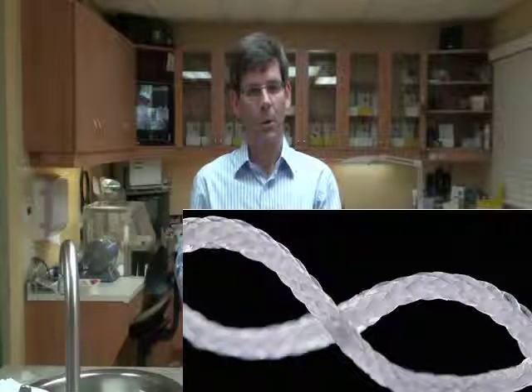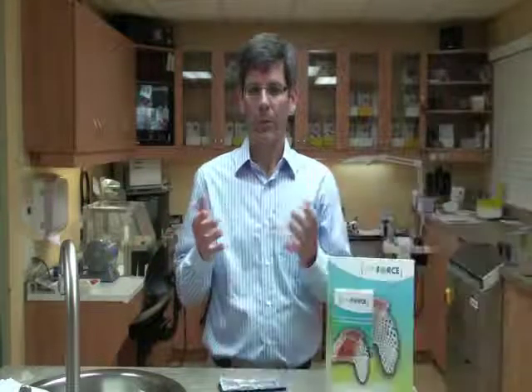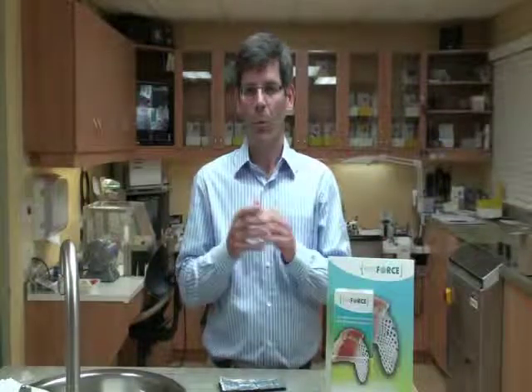There is also a clear version of Fiber Force which comes in 1 and 2mm braid, unidirectional fibers, and a braided ribbon. Regardless of the color of Fiber Force, all Fiber Force materials are pre-impregnated in a light-cured resin.